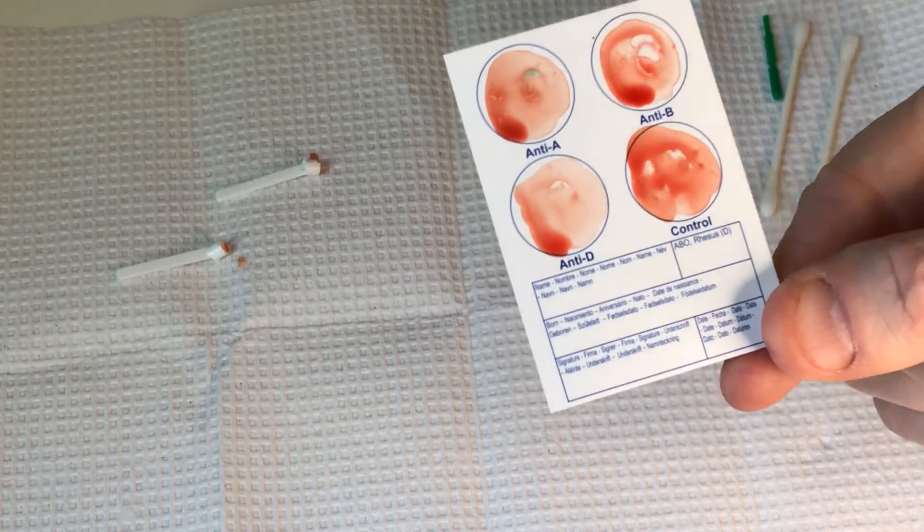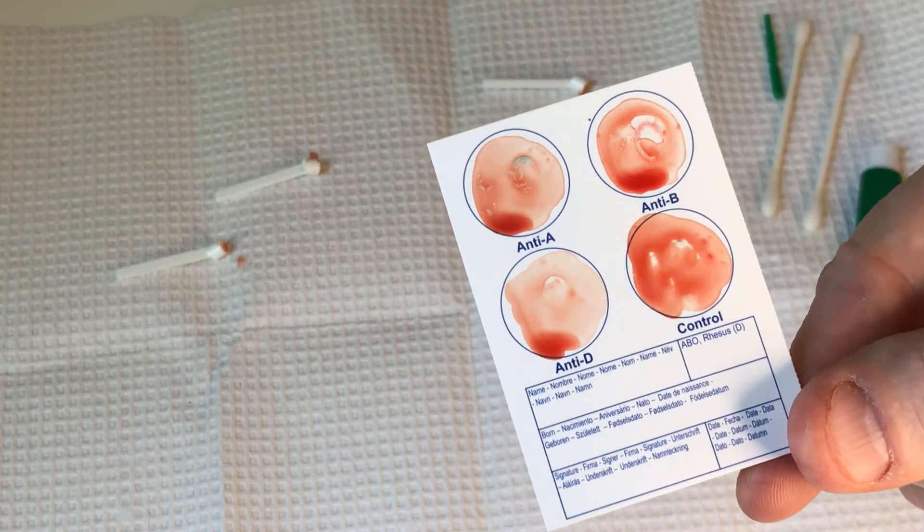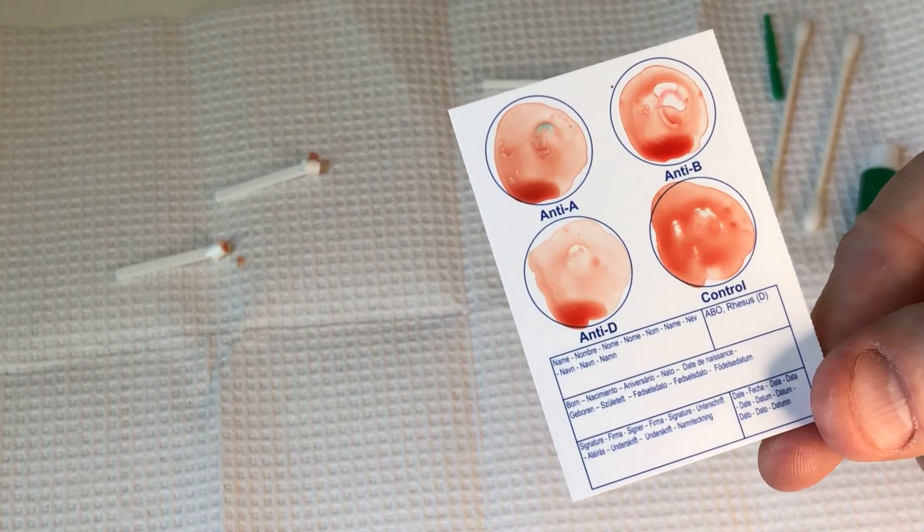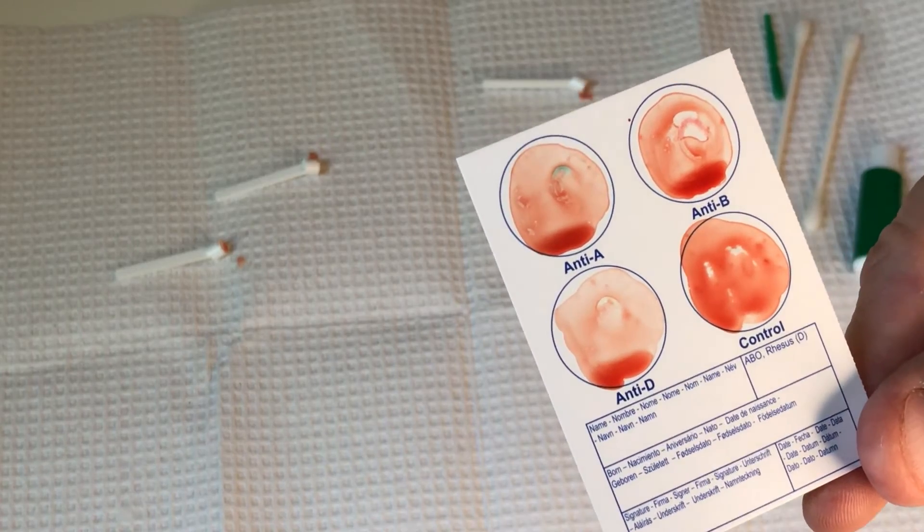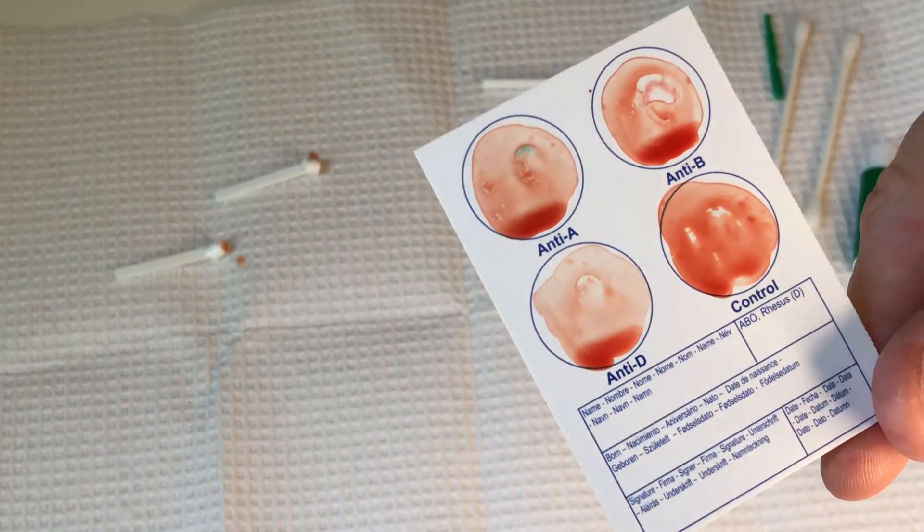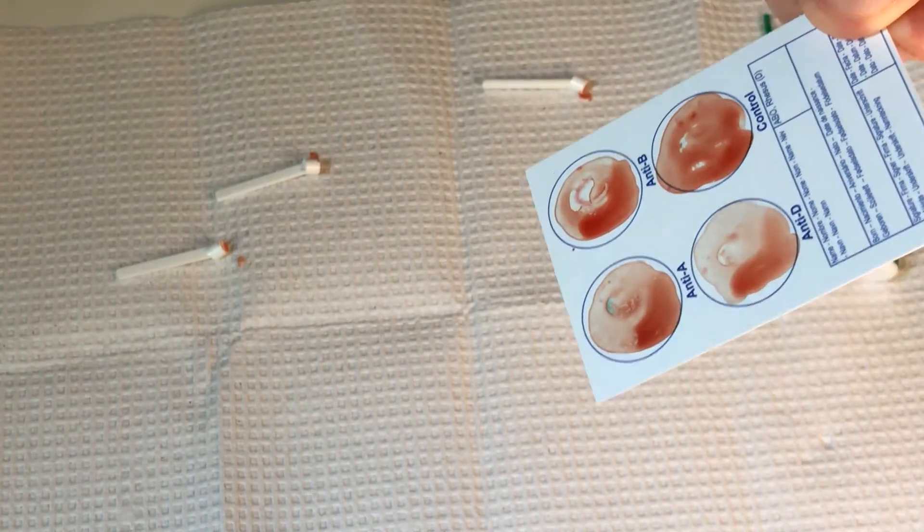So what we're looking at here, if I can just hold it like that, is that it doesn't look like much to anybody. But what I can tell is that there's no reaction. All the blood is still pooling and there's no noticeable speckling.